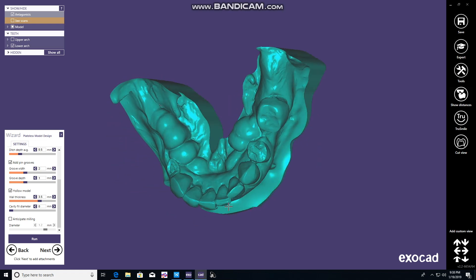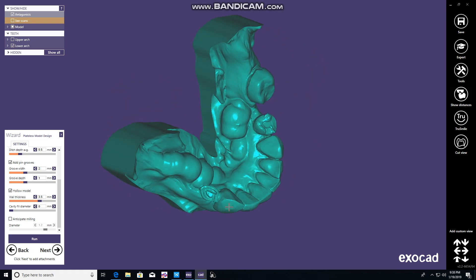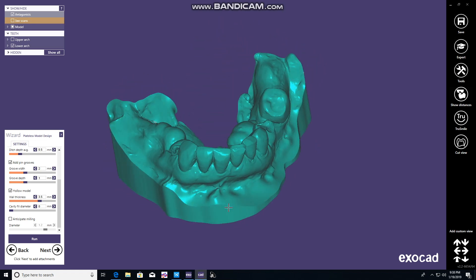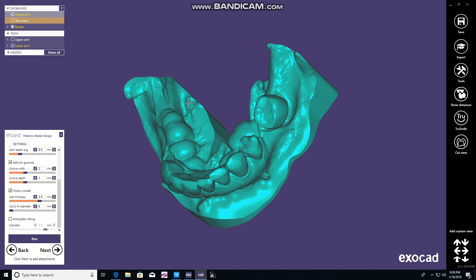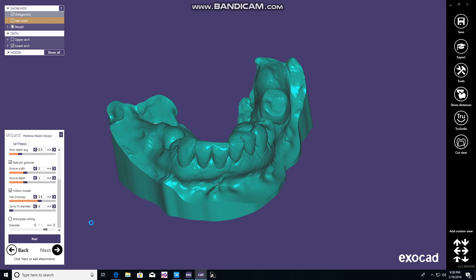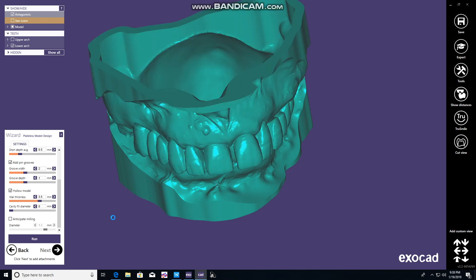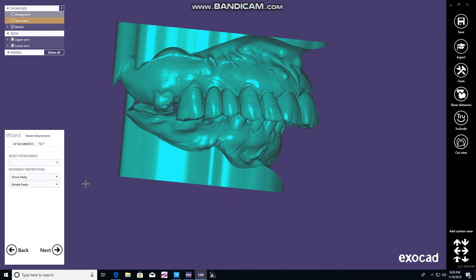Hit the next button, and at this point you can add supports, structures, or mounting plates. In our case, we just print the models and mount them separately. I'm sure you can do more than that, but we're going to add names to it.